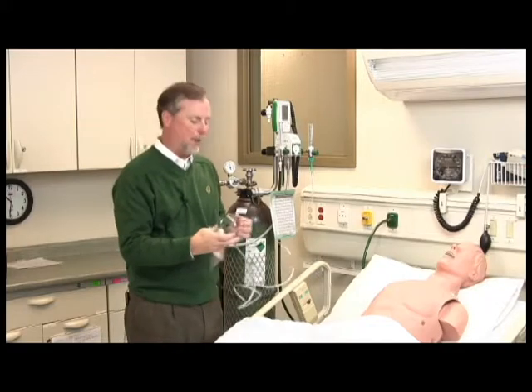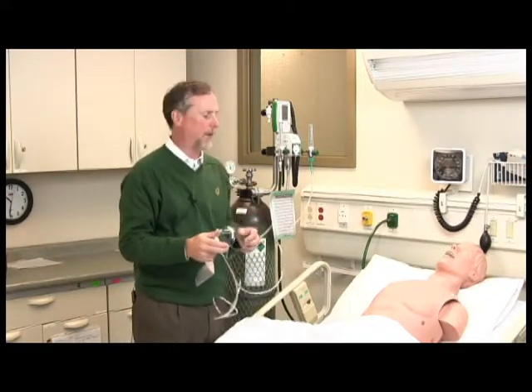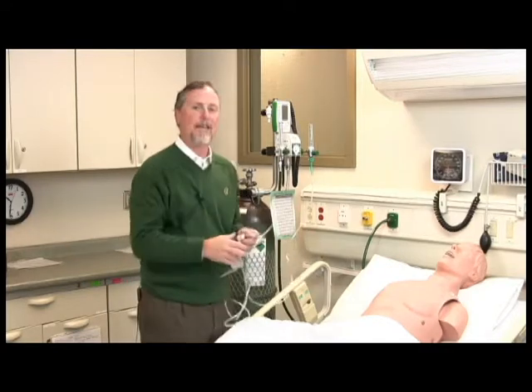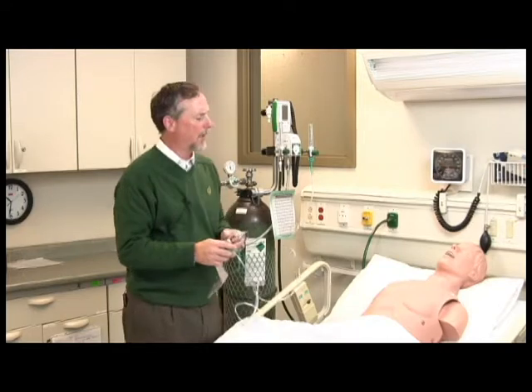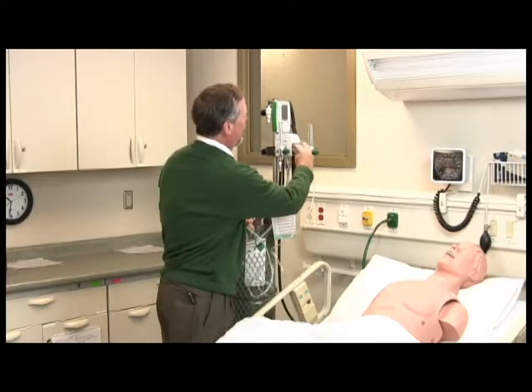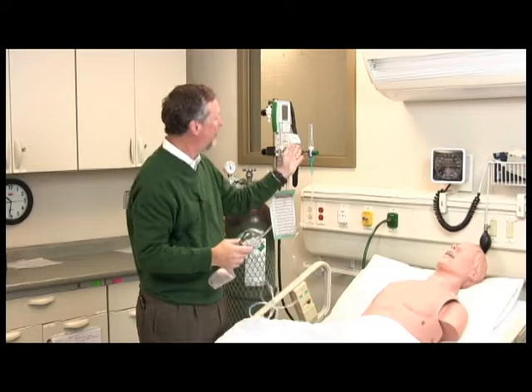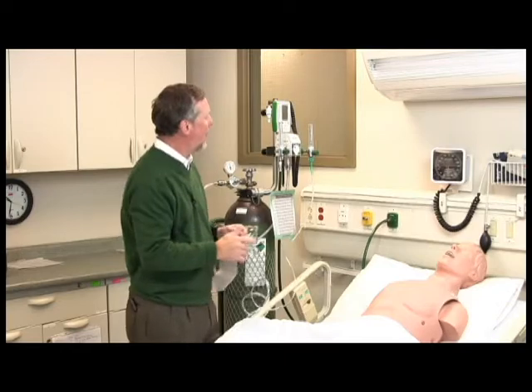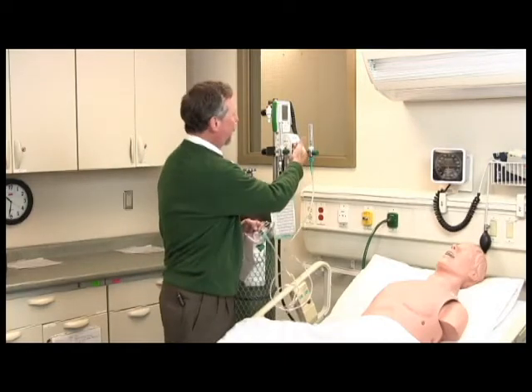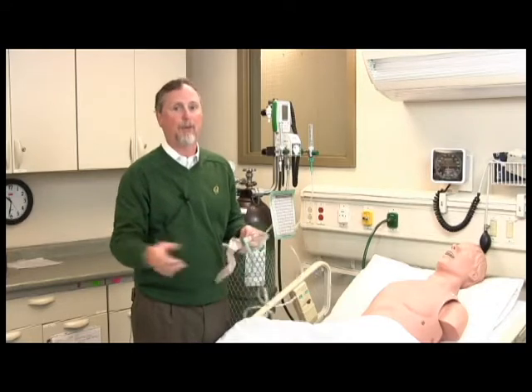And where to start therapy? What FiO2? Well, what FiO2 is the patient requiring? Presumably maybe we're in the ER and you already have a baseline knowledge of what this patient requires. So we'll say that the patient's requiring 40% oxygen. So we'll dial the dial up to 40%, and this is the actual oxygen percentage, not the Heliox percentage. And it is of note that if this is 40% oxygen, the remaining balance is 60% helium.